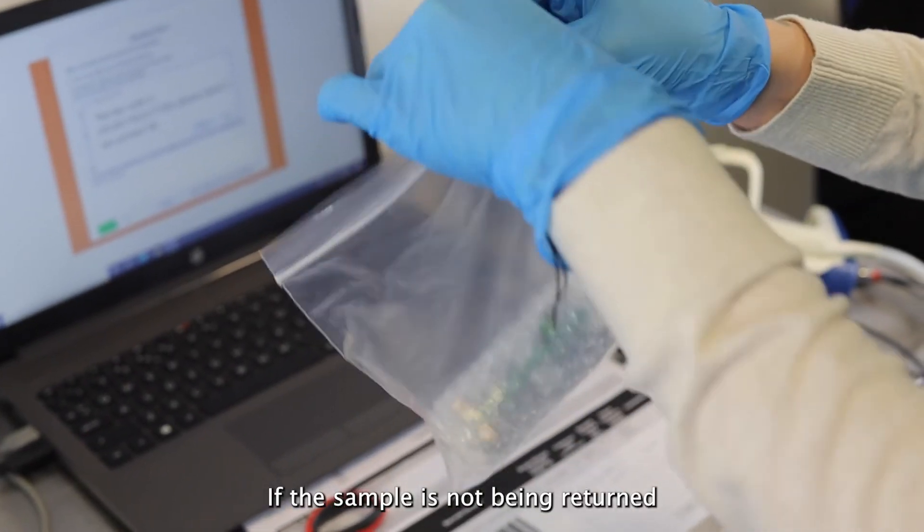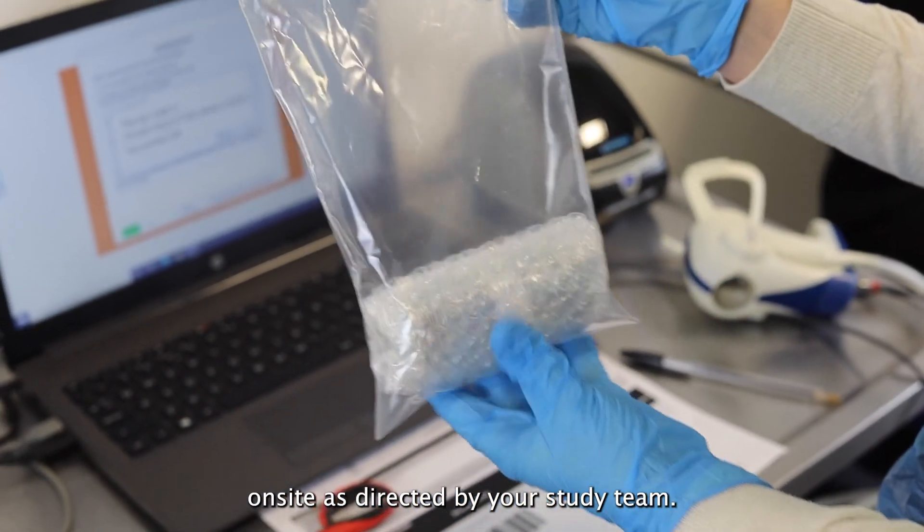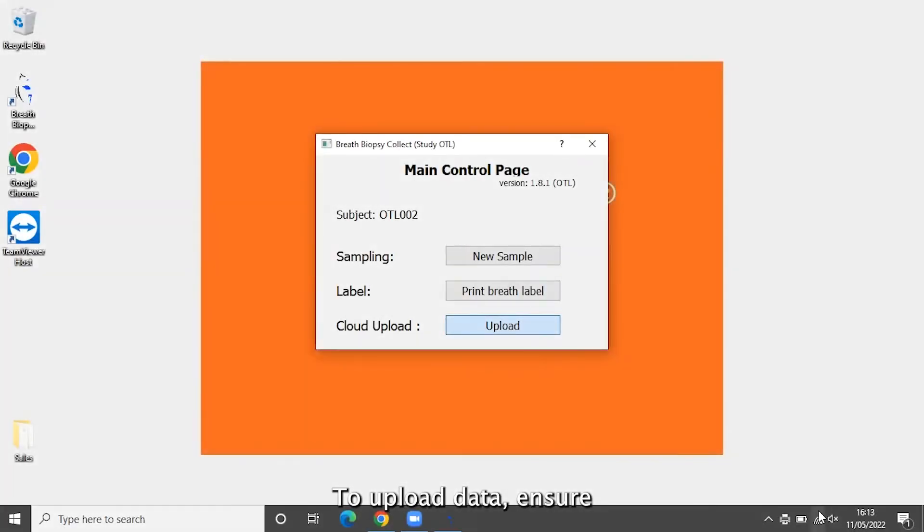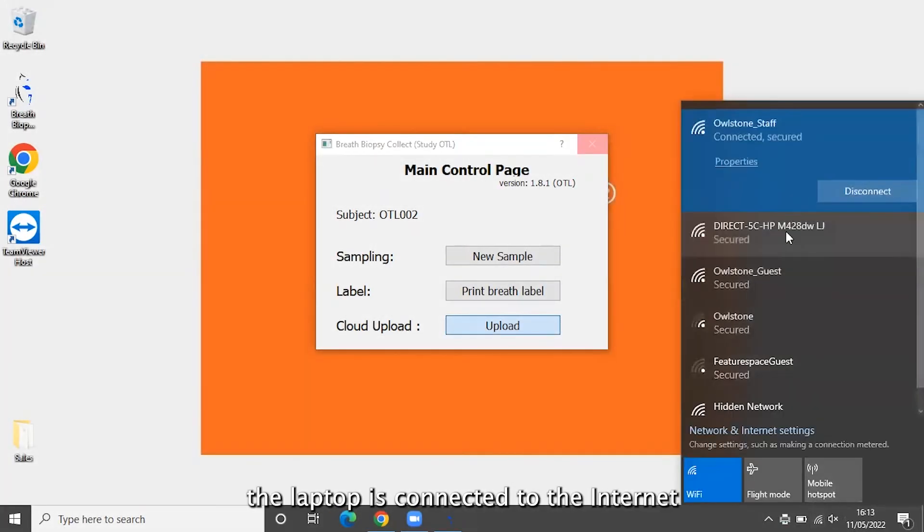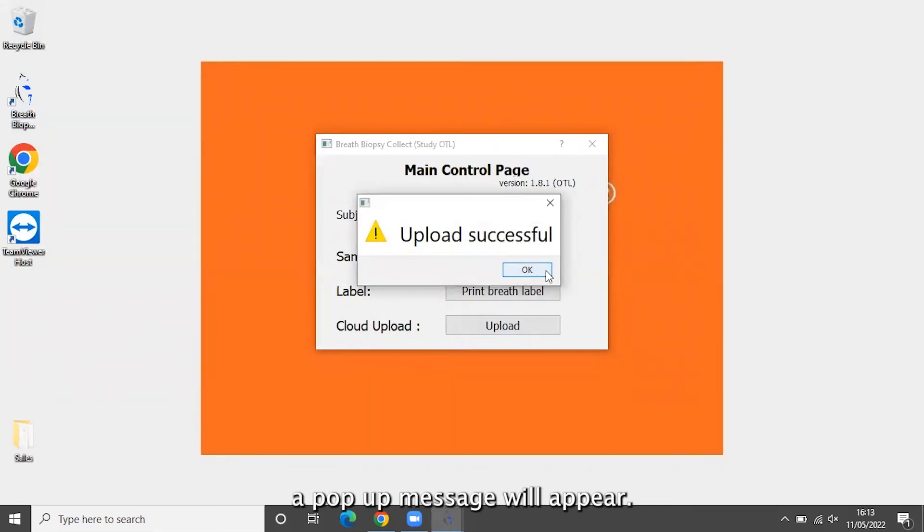If the sample is not being returned to Owlstone on the same day, it should be stored on site as directed by your study team. To upload data, ensure the laptop is connected to the internet and click the cloud upload button on the landing page. If the upload is successful, a pop-up message will appear.